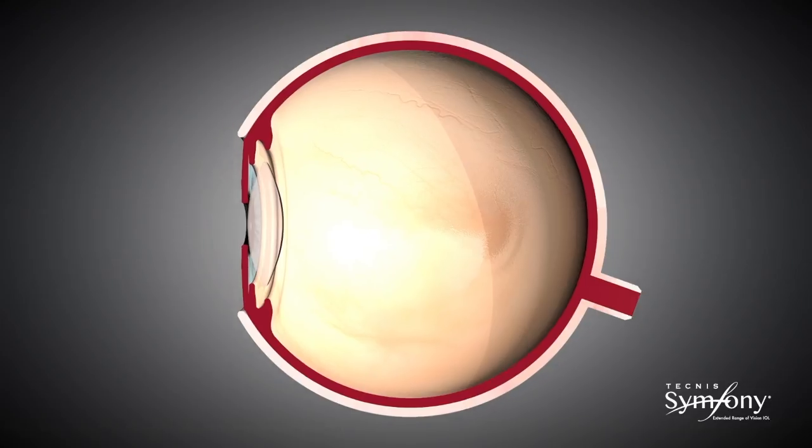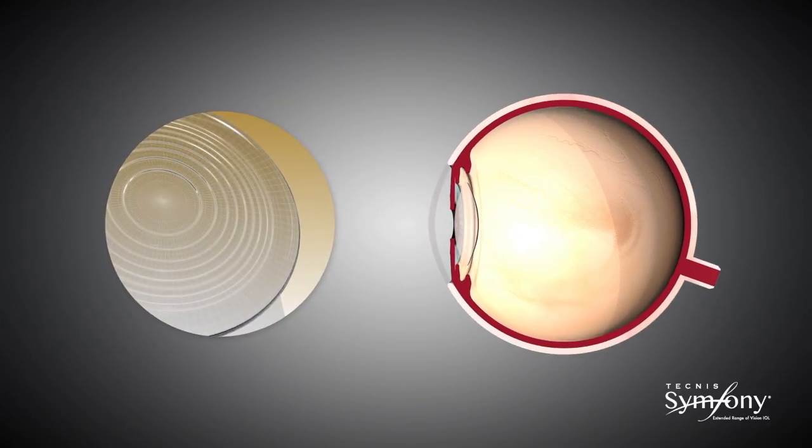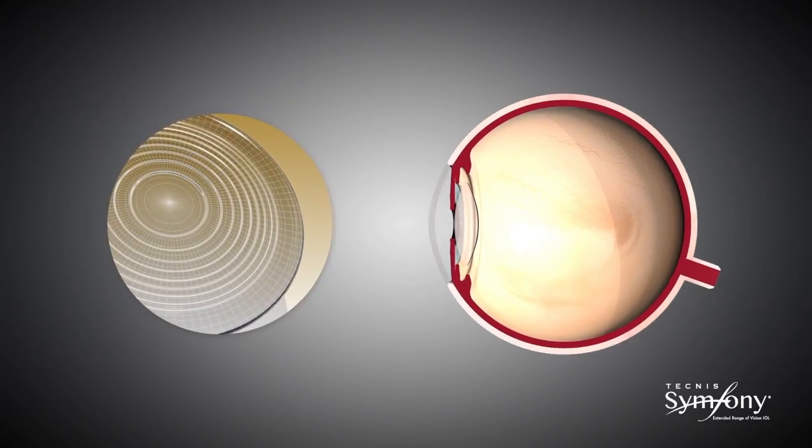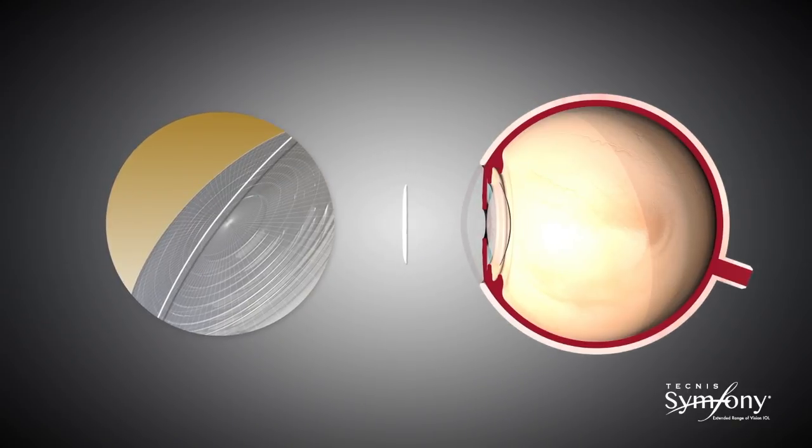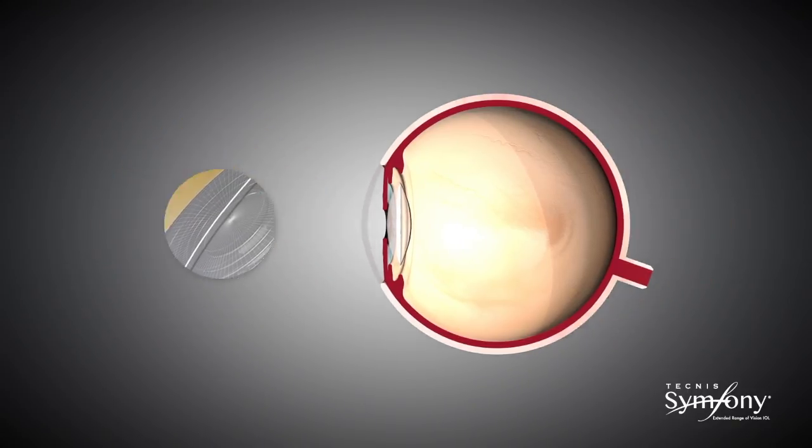The lens uses diffractive optics, but in a very different way, to extend the focal range from a single point to a continuous range from distance to about arm's length.